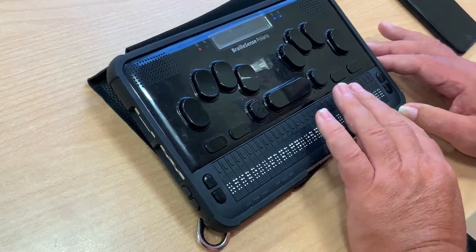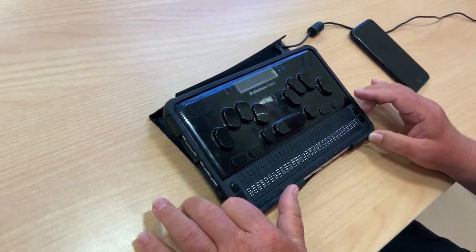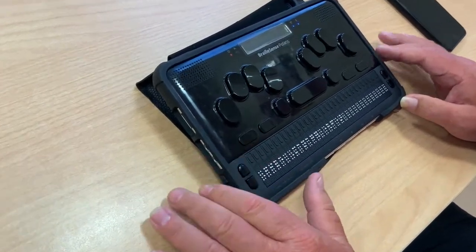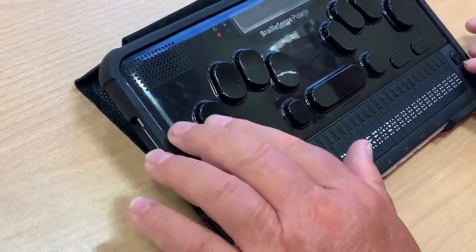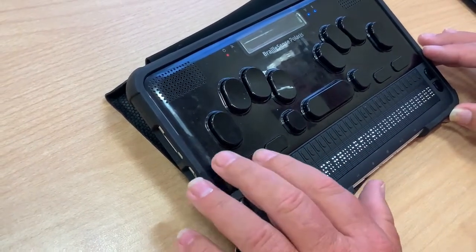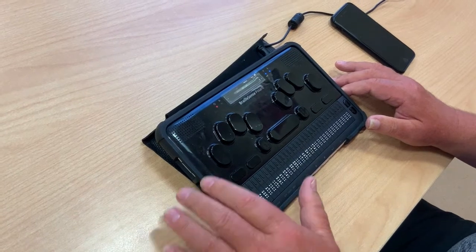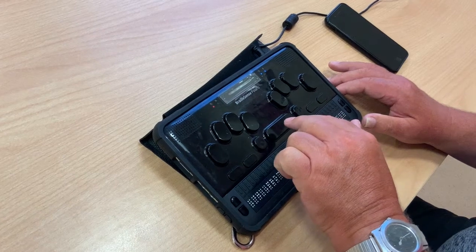Now I'm going to give an example of the various menu structures within the BrailSense Polaris. I'm going to press F1, which is the key to open the menu — as I've explained in a previous video, it's just under dot seven. I have a number of ways of moving through this menu; the option I'm going to use this morning is the space bar. Moving forward: Word Processor.